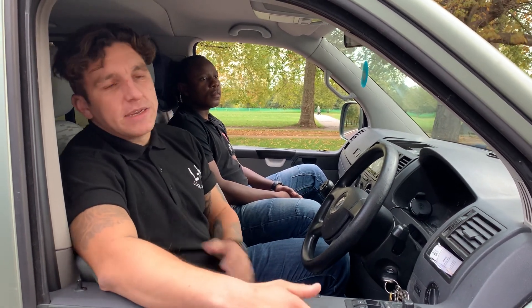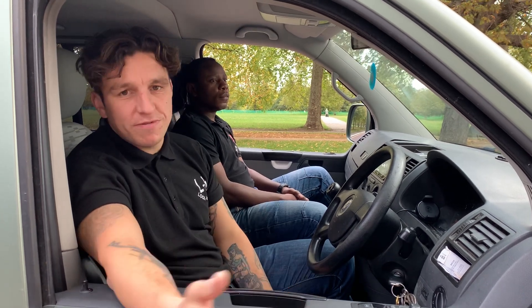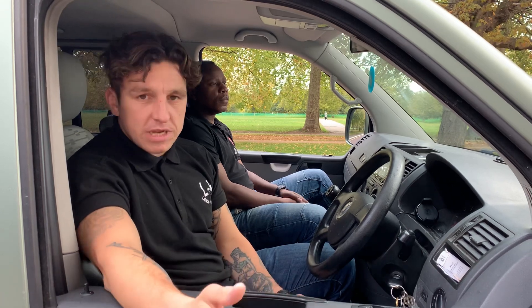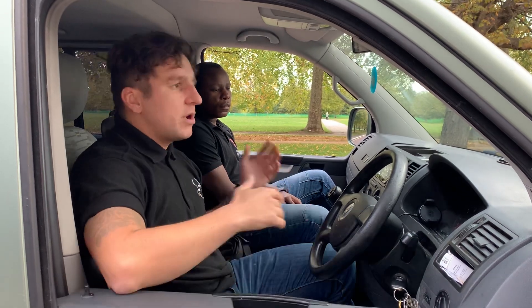What this is looking at is how it's the life fulfillment and enhancement for people with families who have children, young adults with physical disabilities, enabling them to go places where they wouldn't necessarily be able to go with a wheelchair. So we're going to look at how we're going to remove someone from a van to take for a walk in the park.